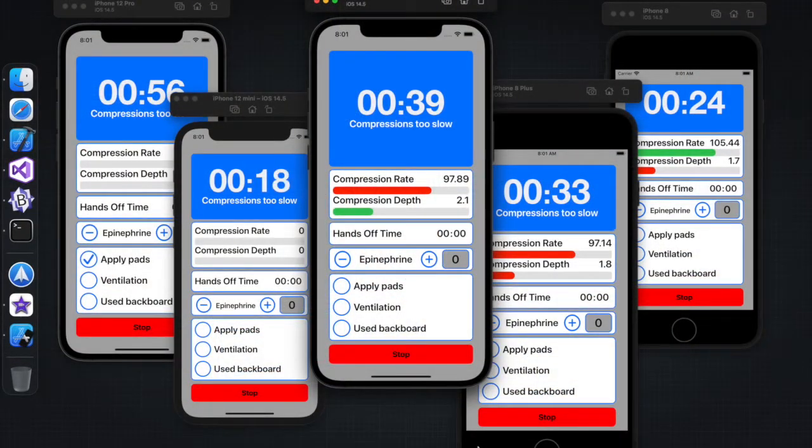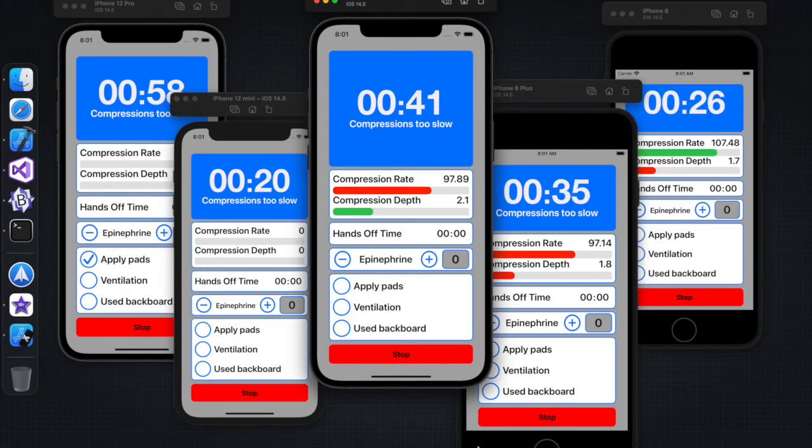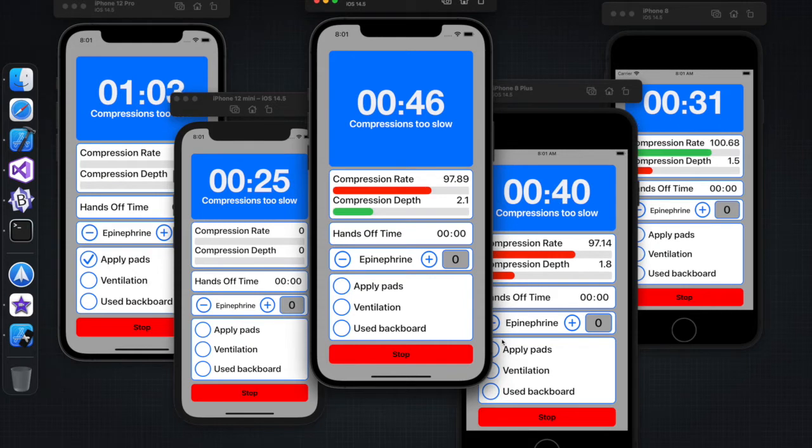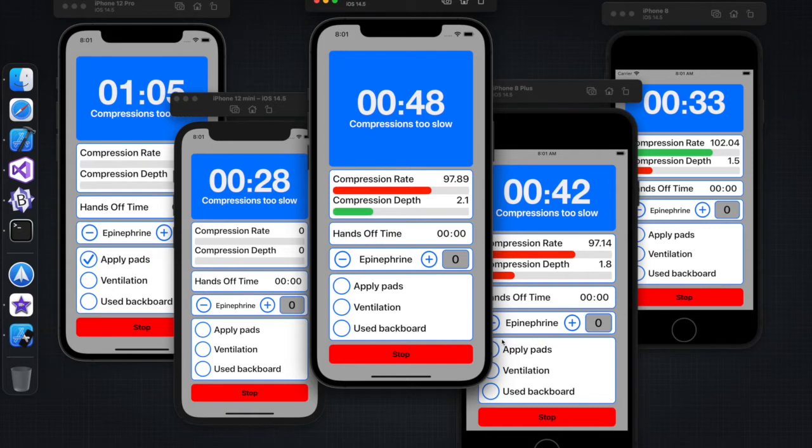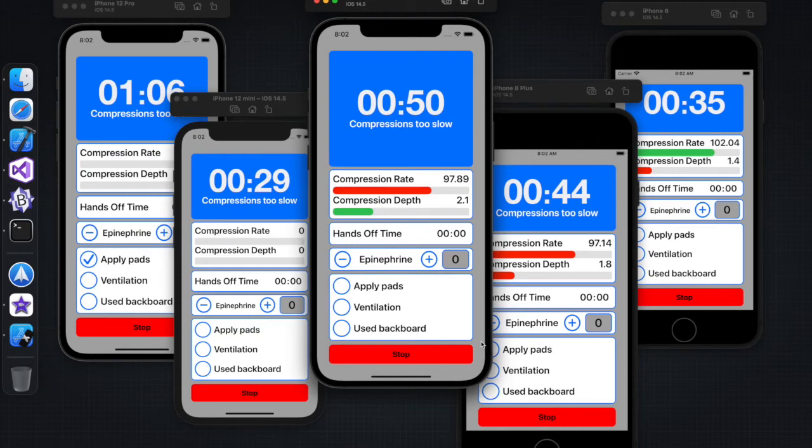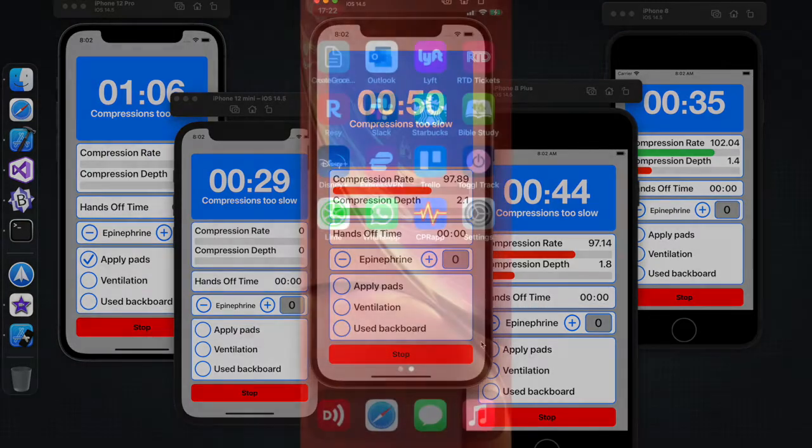While the bioengineering team was developing the sensor, we needed to come up with a way to take the acceleration data that they were going to be sending us and convert it into human-readable form, giving the values of compression rate, compression depth, and hands-off time. Also, we needed to be able to track events that the sensor could not detect, like when the student stops to administer medication. All this needed to fit on a variety of different phones. The end result is a Stayin' Alive CPR training app.